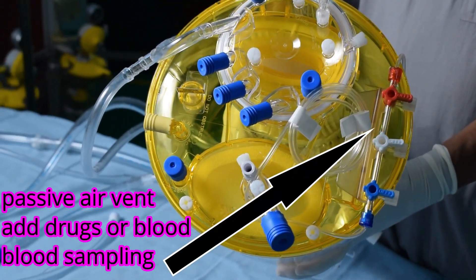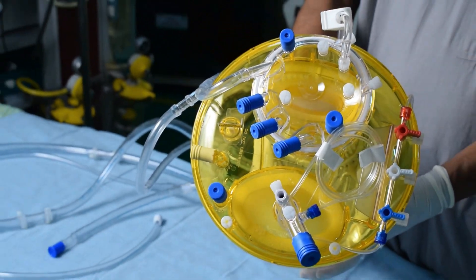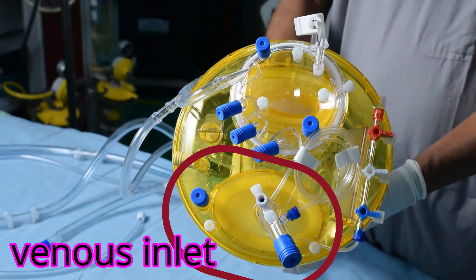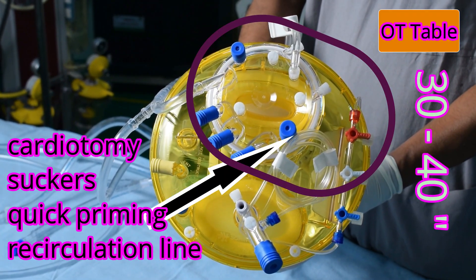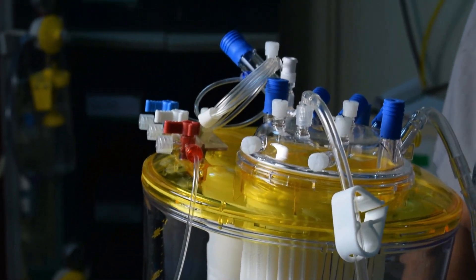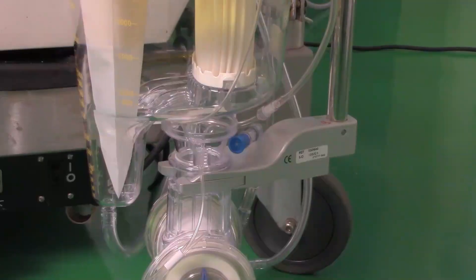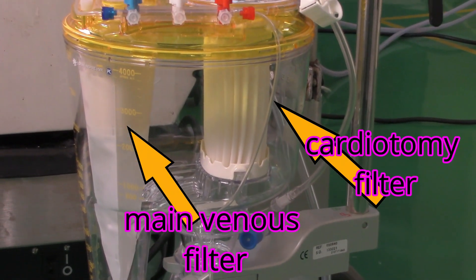The conventional method of going on cardiopulmonary bypass relies on gravity and the height difference between the venous cannula tip and the venous reservoir blood level. The reservoir-to-patient height distance is usually around 30 to 40 inches. This kind of drainage is therefore limited by the internal diameter and length of the drainage catheter, the central venous pressure, the tubing internal diameter and length, the venous reservoir air pressure, and the height difference.